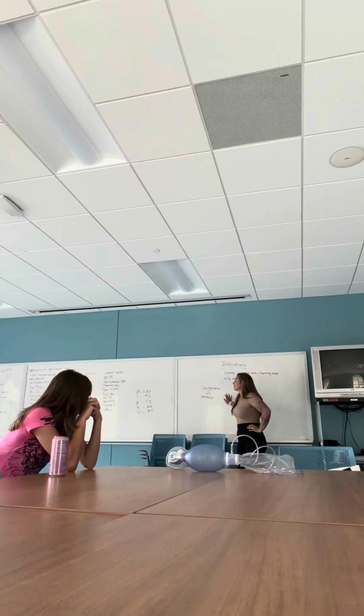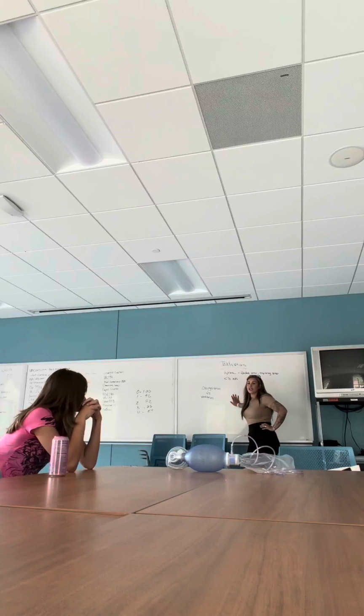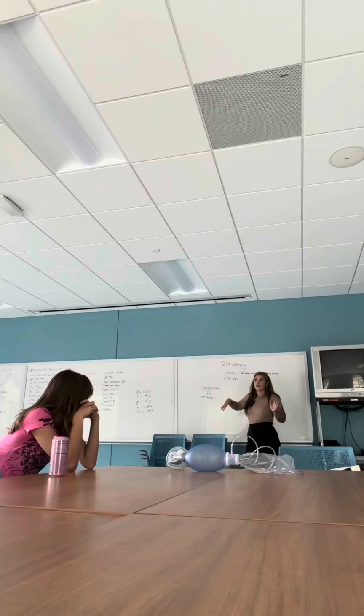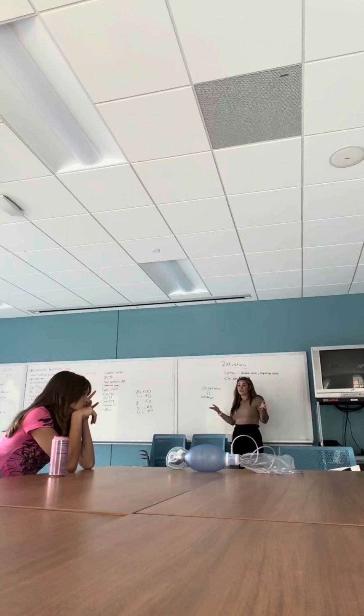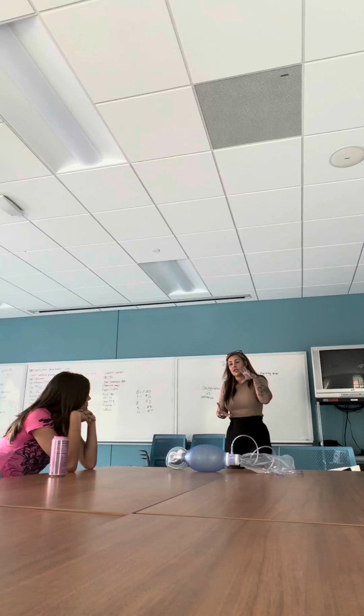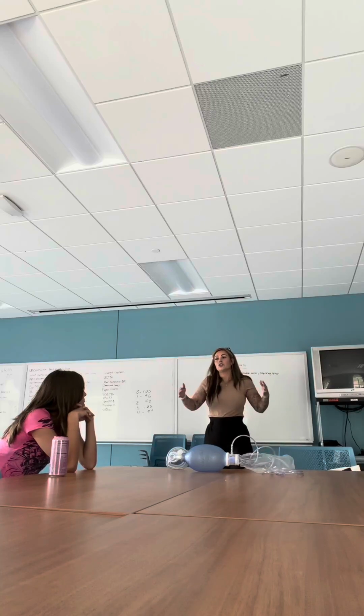So let's talk about what exactly a BVM does. It forces air into the patient's lungs. There's a difference between oxygenation and ventilation. Oxygenation is the oxygen getting delivered throughout the body. It travels through the bloodstream and goes where it needs to oxygenate all your organs. Versus ventilation, which as stated is the actual act of forcing air into the lungs, therefore causing carbon dioxide to exit the lungs.